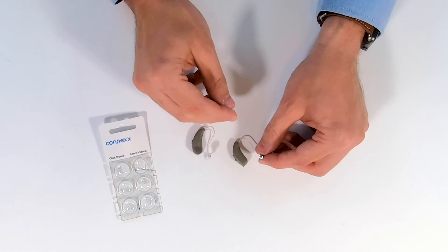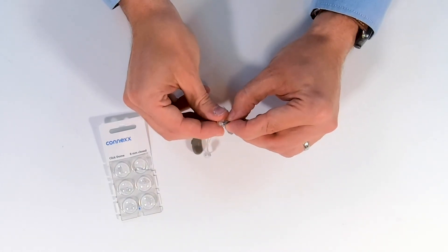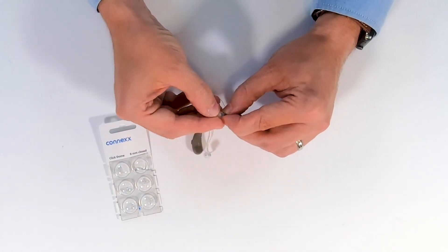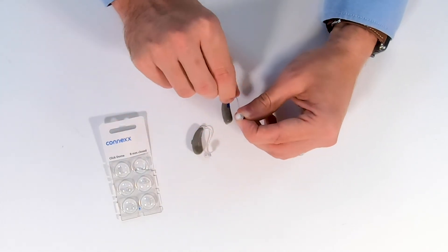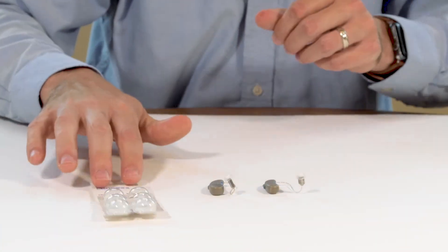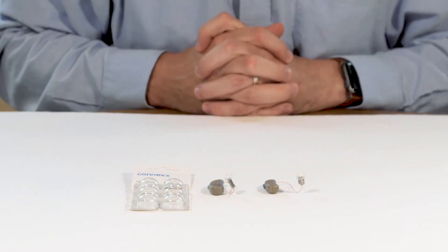To place on a battery operated device, it's the exact same type because the receiver is no different - you just gently snap together. That's how you replace an ear tip.